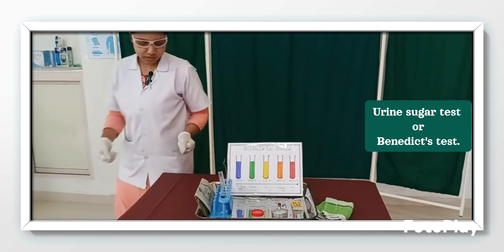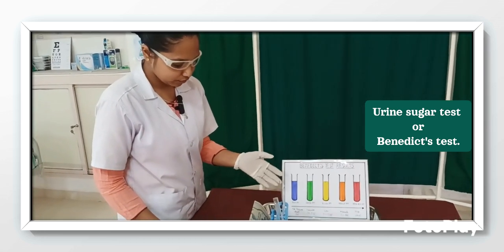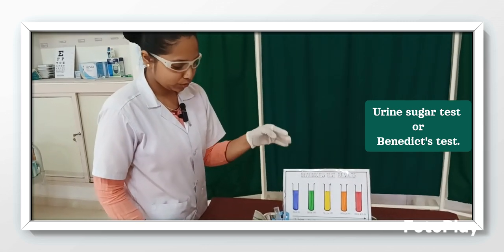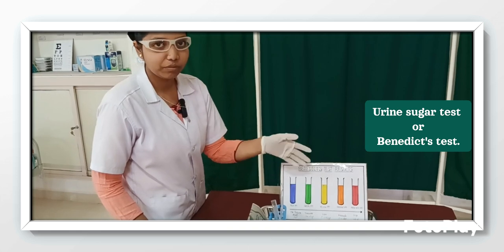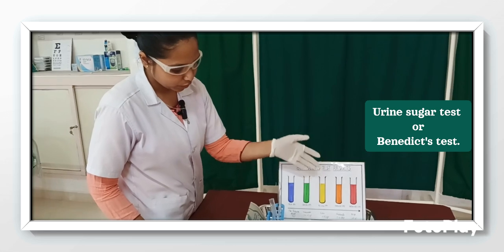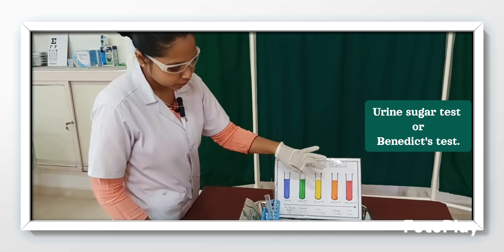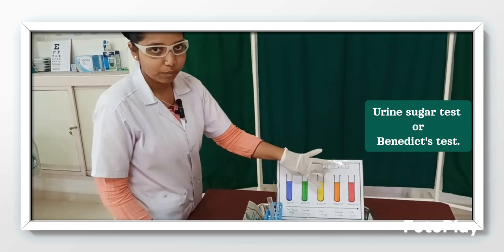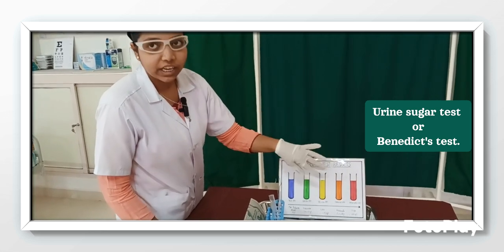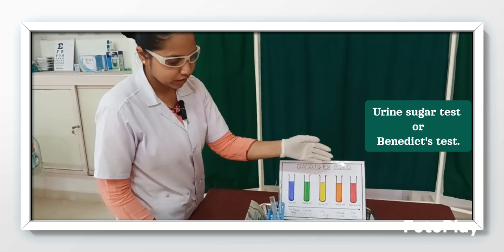Here you can see the interpretation. So the color blue indicates there is no presence of sugar in urine, and in green you can see there is a presence of glucose, which is 0.5 to 1, but a little bit. In yellow you can see 1 to 1.5 gram of sugar will be present in urine. Then in orange there will be moderate presence of glucose, which is 1.5 to 2 gram of glucose in urine. In brick red color, which indicates severity, more than 2 gram of glucose is present in urine.